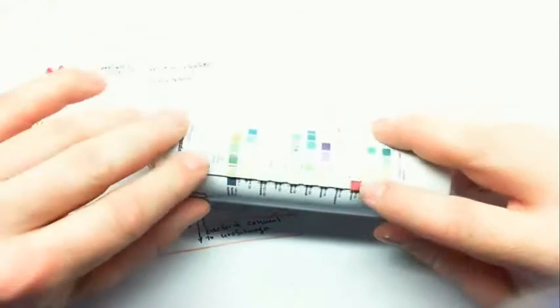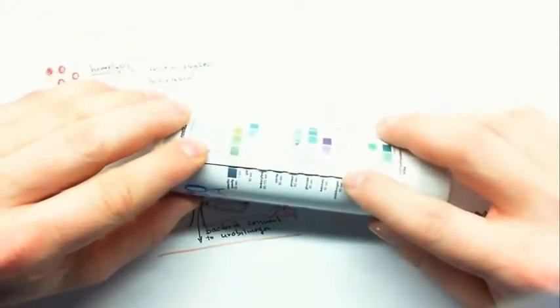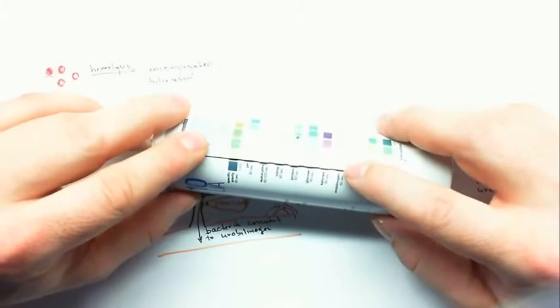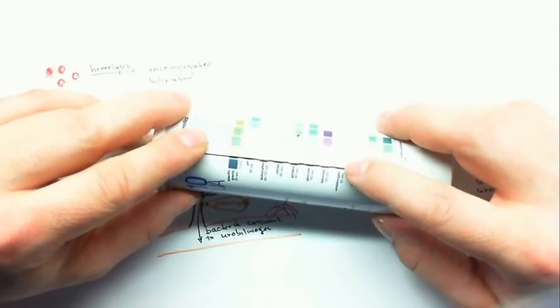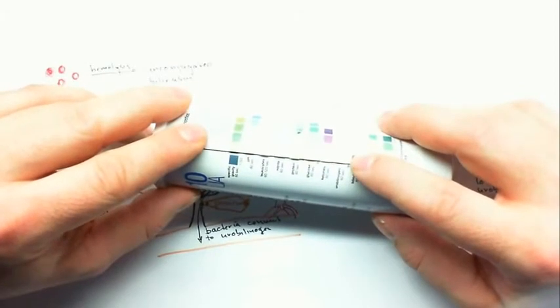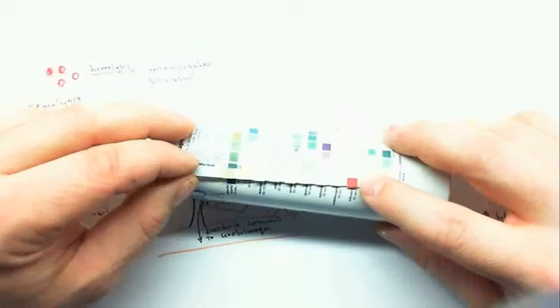In this stick, there's high bilirubin and low urobilinogen. There should be urobilinogen on the stick, and its absence suggests an inability to get conjugated bilirubin into the gut. The increase in bilirubin confirms this, and so this is a test that's positive for biliary obstruction.